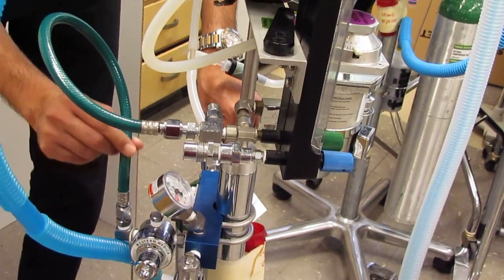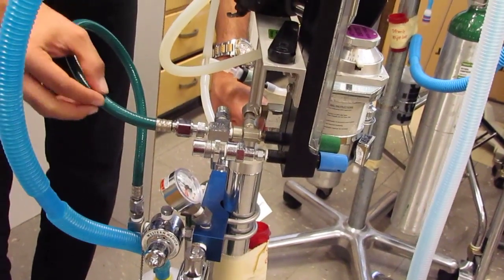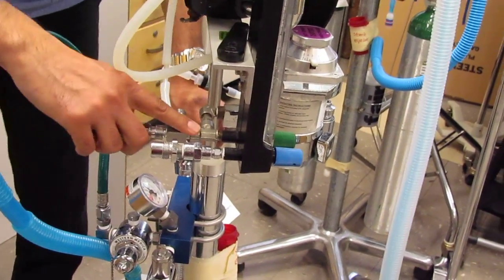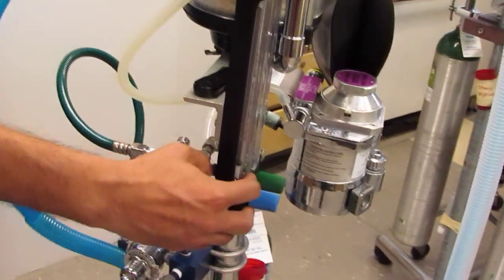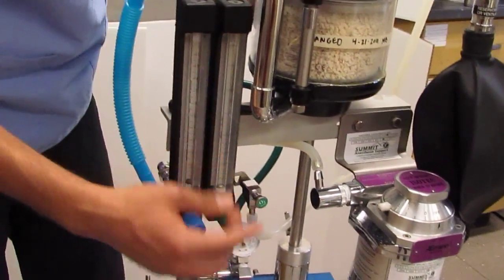Once we get it down to about 50 psi, we continue through this green hose and it enters our flow meter. So this is our flow meter right here, shown here in this component.